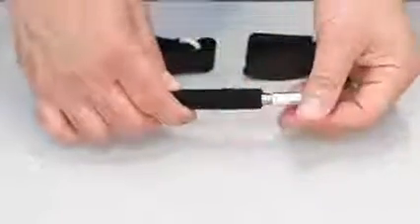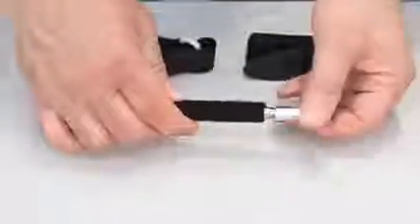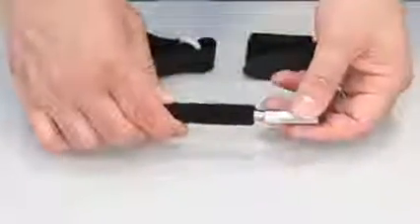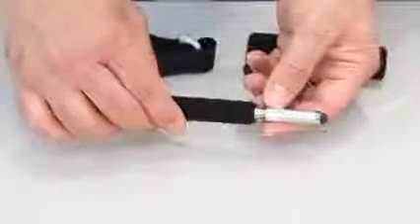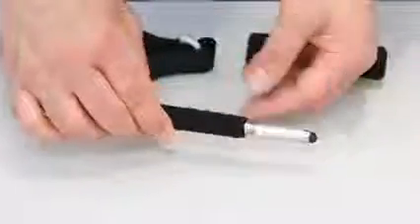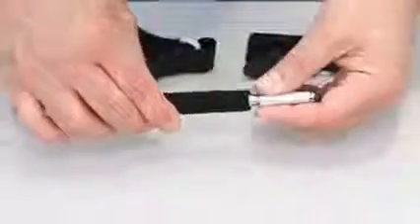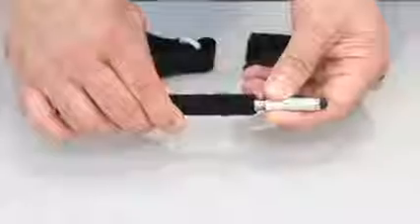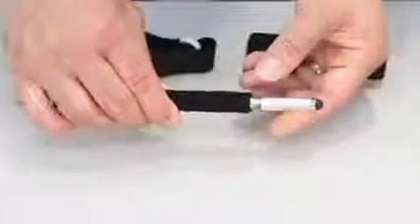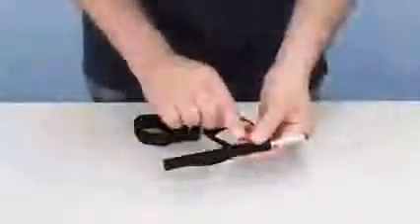This will unscrew and just screw on the new replacement tip. We include replacement foil bands that need to be taped back on. This holds it in place and allows it not to spin. What's on the base here is velcro.